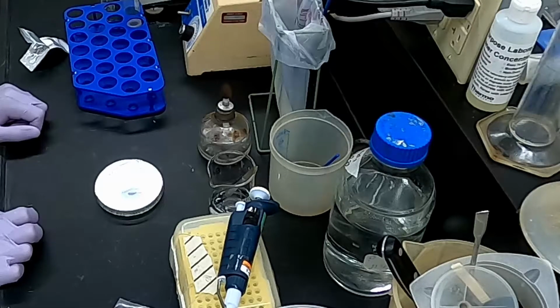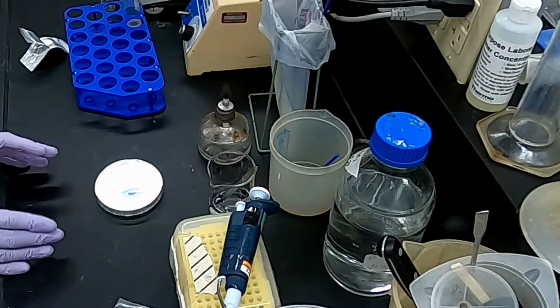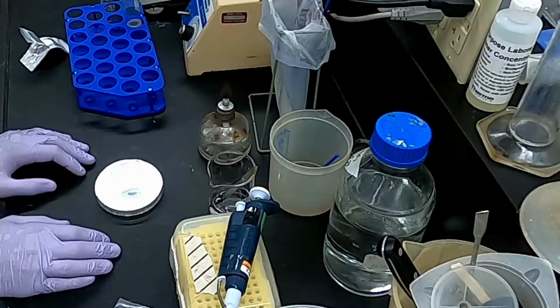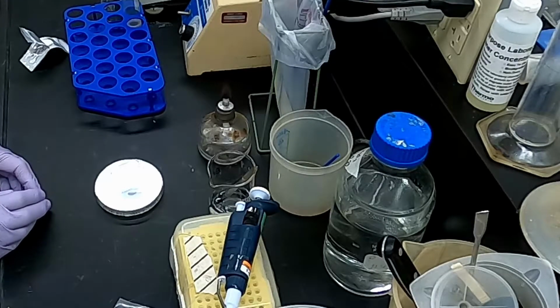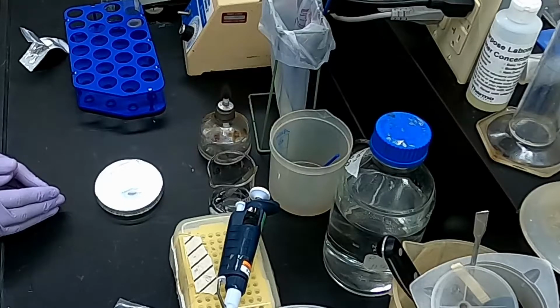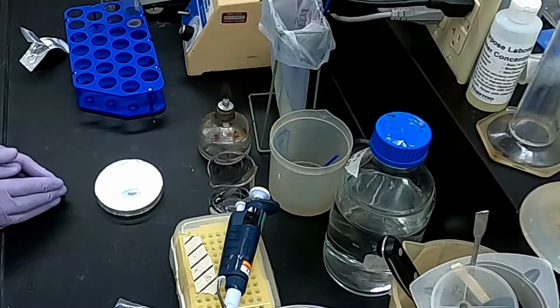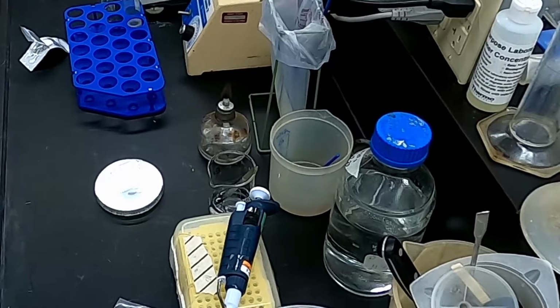What that's going to do is it will inhibit the bacteria from growing around the strip up to a point where the concentration gradient diminishes down below the MIC. And so what we're going to see is a zone of inhibition, and depending on where that zone of inhibition ends, we will be able to determine the MIC. But all that will make more sense when we skip forward to tomorrow after our 24-hour incubation and you can see the plate all grown up. So I'll put this in the incubator, and then we'll come back tomorrow and we'll read the result.